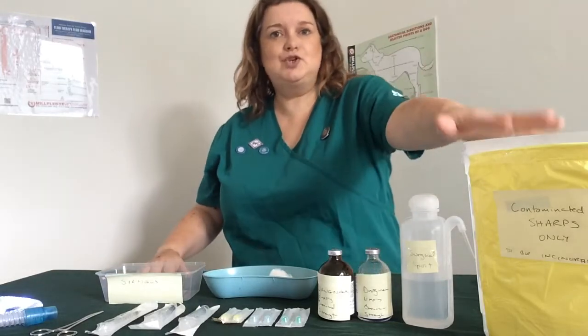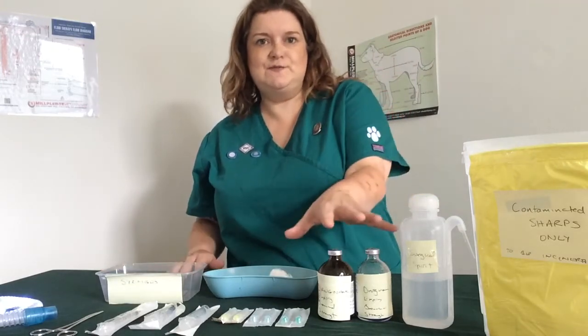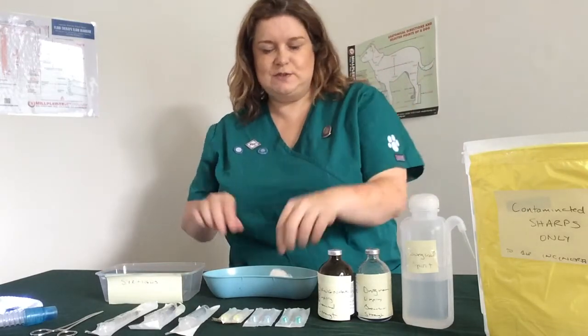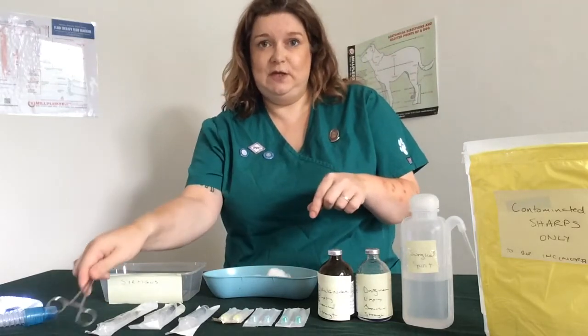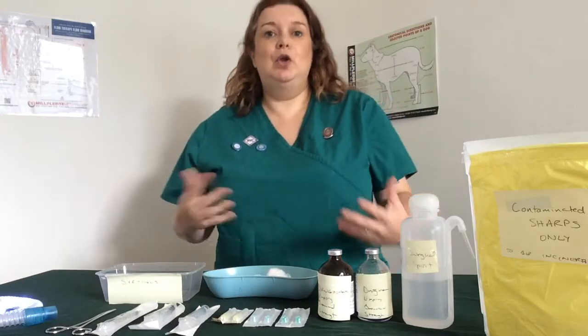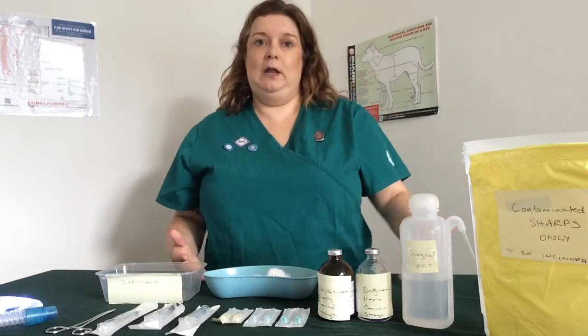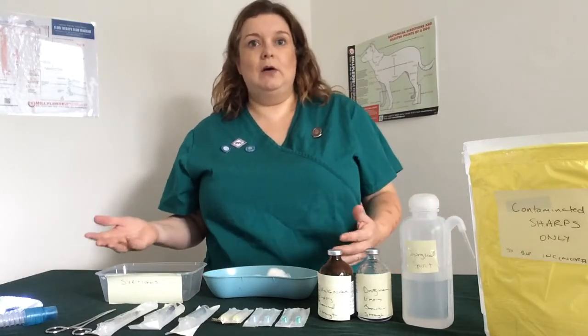So I've got a sharps bin, I have got a waste bin for my syringes, I've got a choice of 2 medications, I've got surgical spirit, I've got cotton wool, I've got forceps for safe needle handling, I've got a choice of needles and a choice of syringes. So you're going to be given a scenario saying an animal needs this medication of this strength and a calculation.